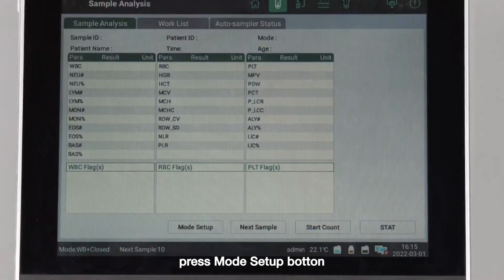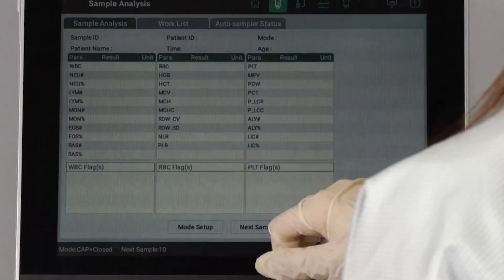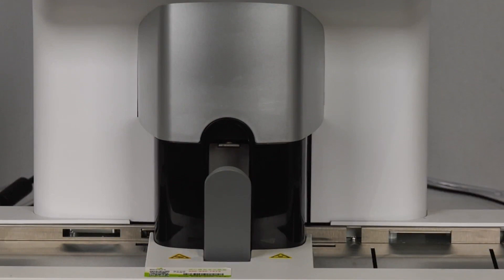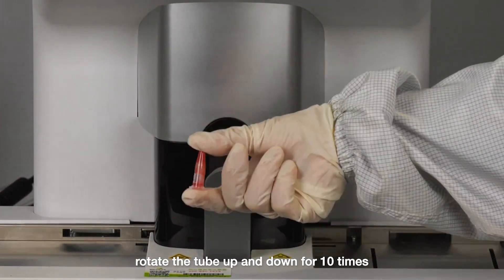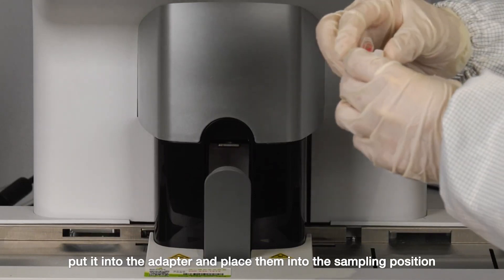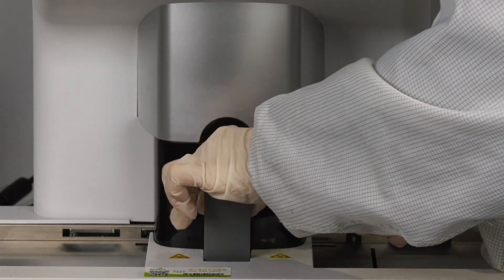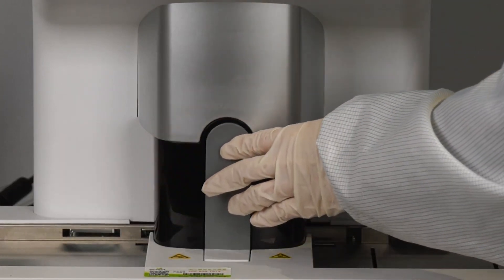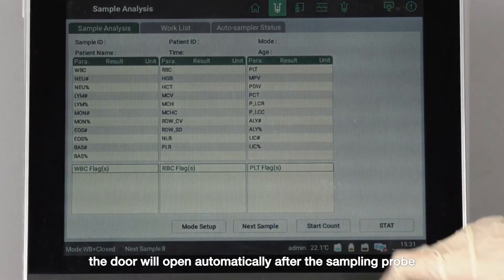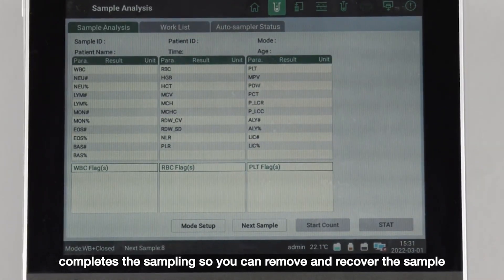Press the mode setup button, select the sample type to be tested, and enter the sample ID. Rotate the tube up and down 10 times, open the cap of the fully mixed sample tube, put it into the adapter, and place them into the sampling position. Then close the door and press the start count button. The door will open automatically after the sampling probe completes sampling, so you can remove and recover the sample.